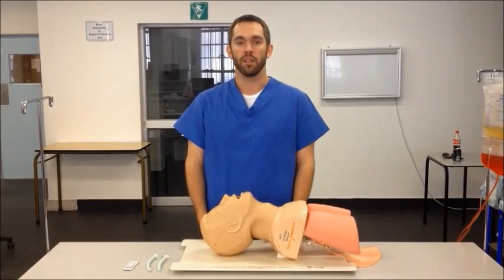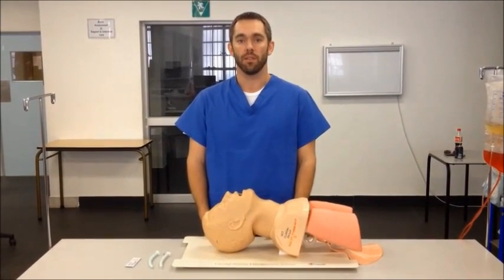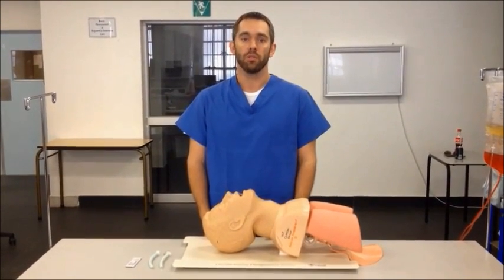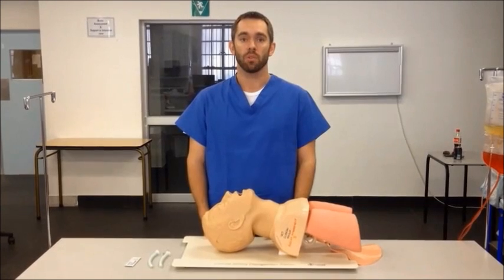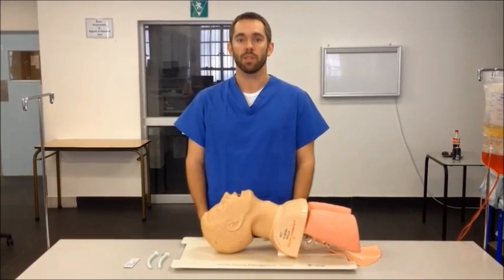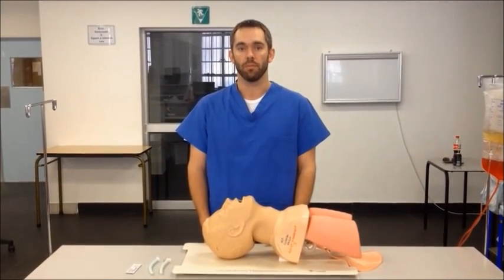A nasopharyngeal airway is an airway adjunct device used to manage airway obstruction caused by collapse or sagging of upper airway soft tissue.